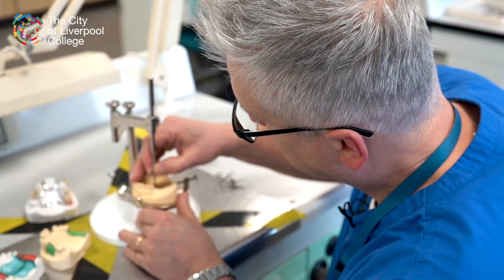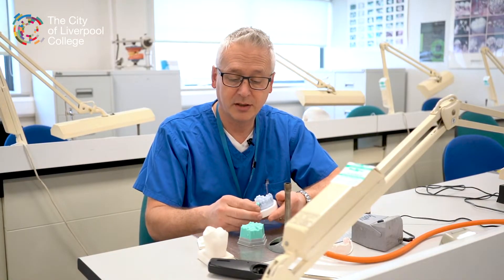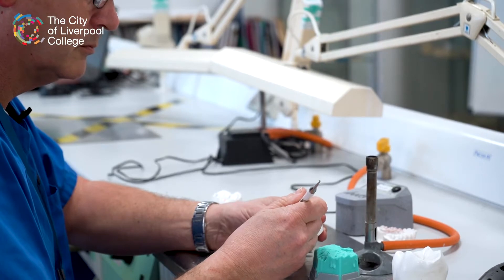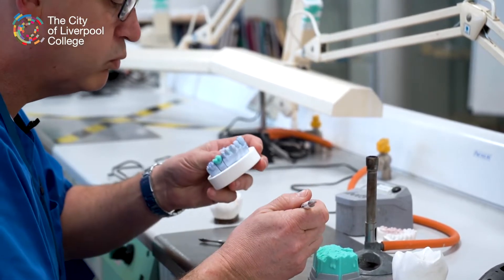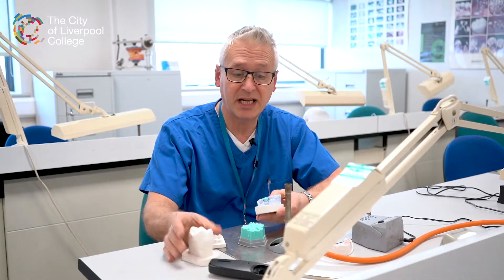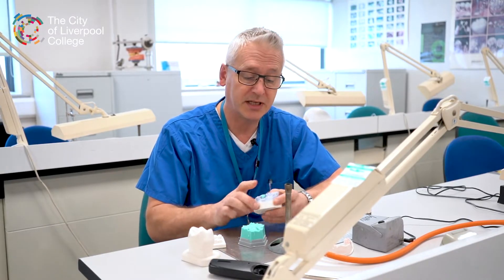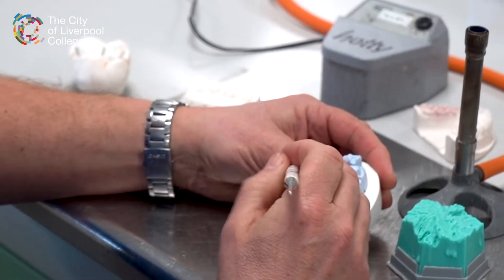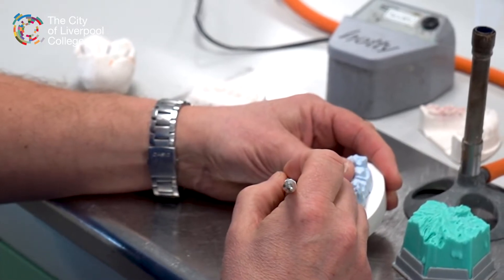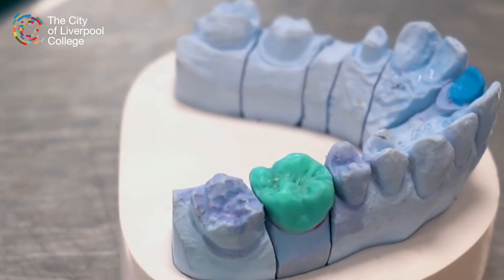This is an example of some of the fixed technology that we've done. This is a gold shell crown which is going to be cast up, so we're combining the anatomy that we learned in previous units and applying it to doing anatomical wax-ups like this. We'll also blend that with digital technology and do some ceramics work as well, building up crowns.